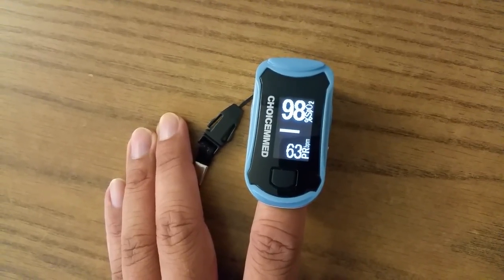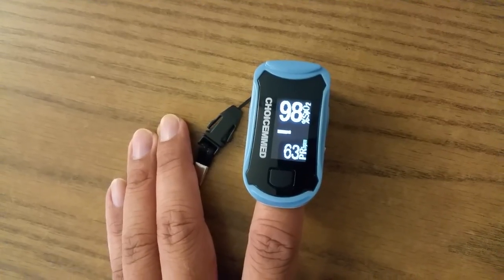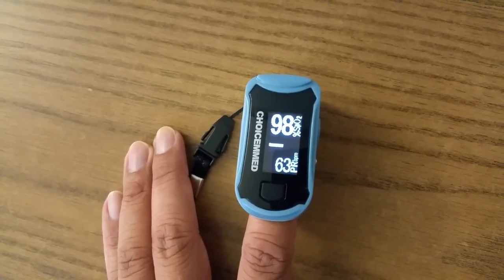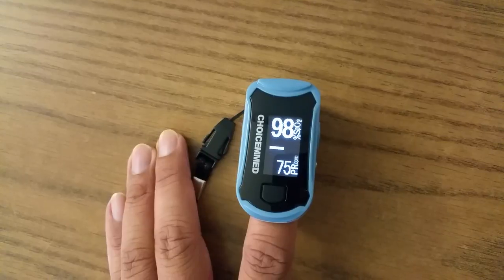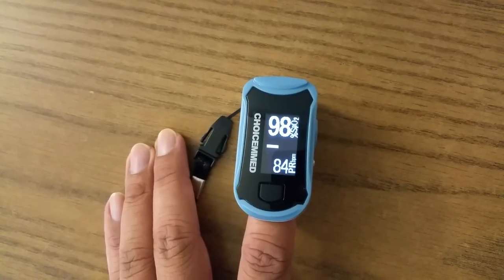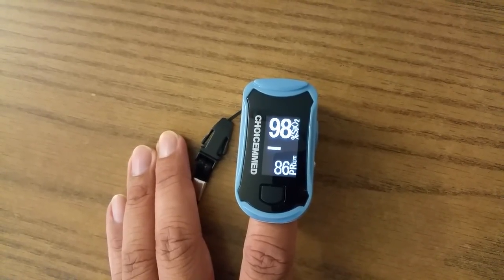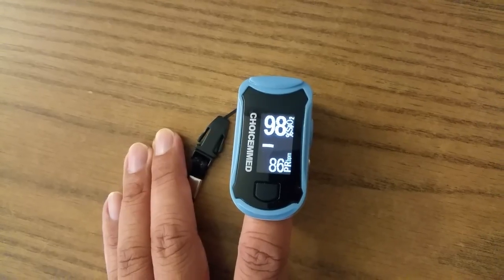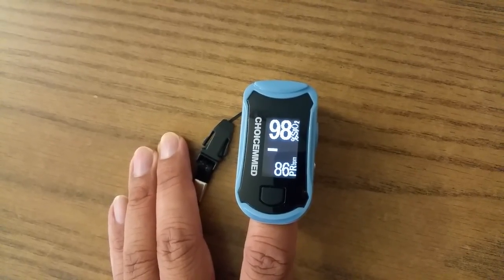As you can see, I have the reading going on already. Basically, the top number is the amount of oxygen in your blood, and the lower number is your pulse.